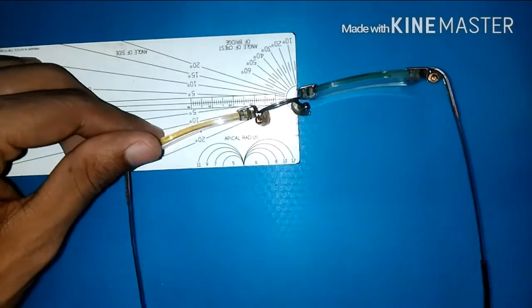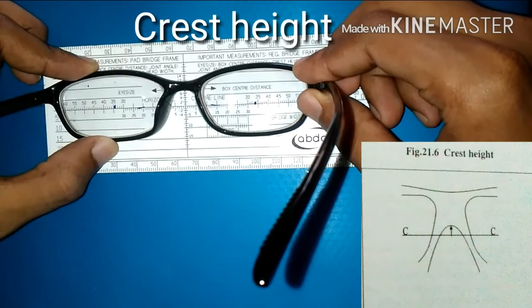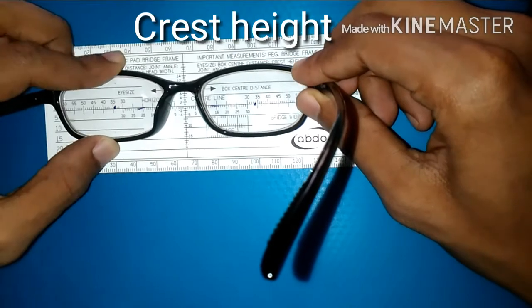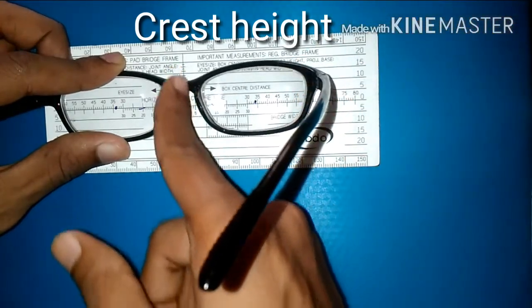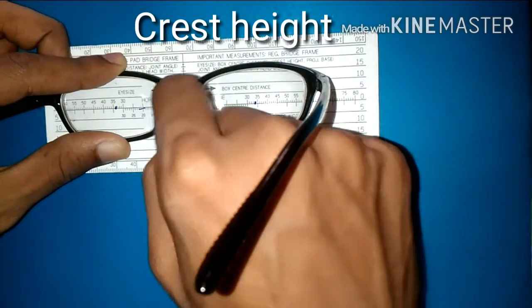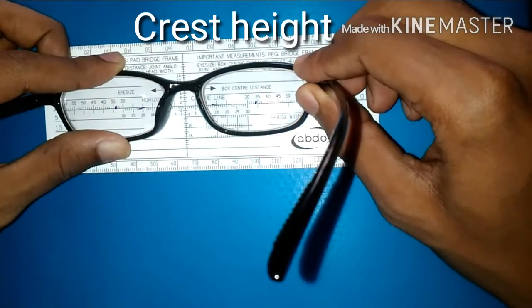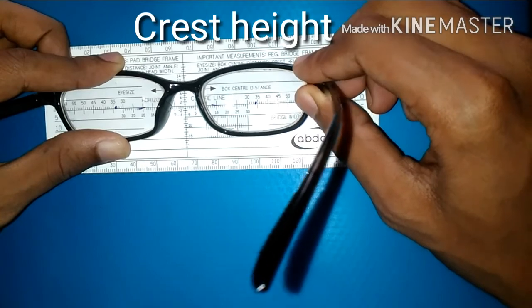To measure the crest height, place the horizontal line of the frame over the horizontal line of the scale and place the frame center along the vertical line, then measure at what position the lower end of the bridge falls. For this frame it's 7mm.